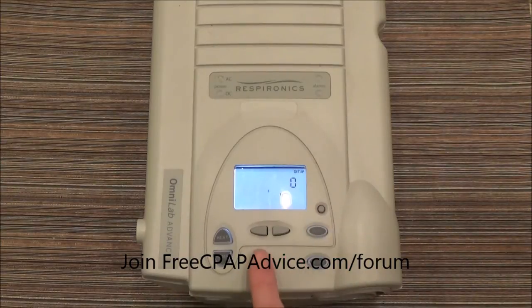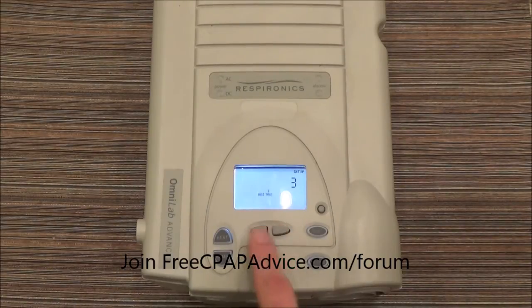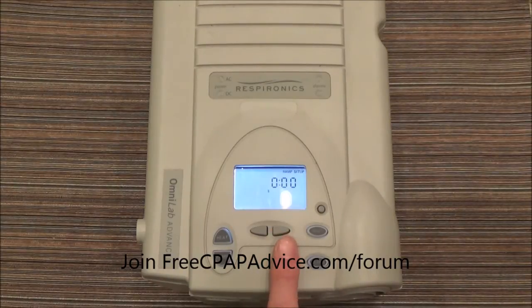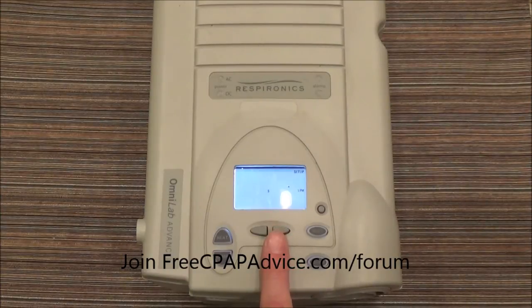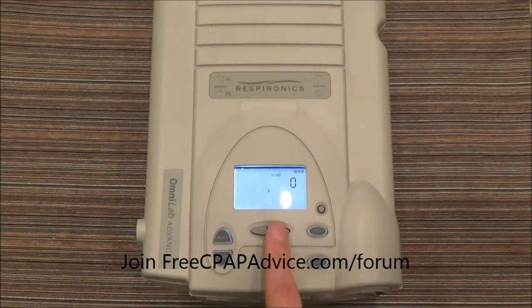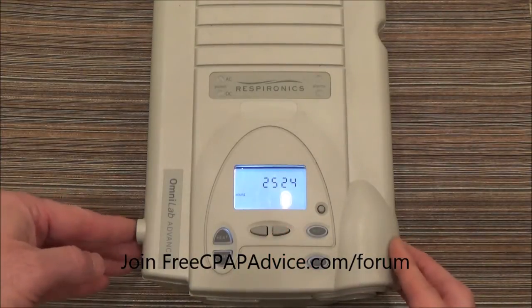Move on if you want to use Biflex — up or down to use that. Advance, and you have your rise time setting — again up or down. You can set the ramp; I don't know why you'd do a ramp in a lab setting, but there you go. That's for alarms — you can change minute ventilation. And when you get out to the hours and the light, you have gone all the way through, which means when you turn the machine on it's going to hold those settings.